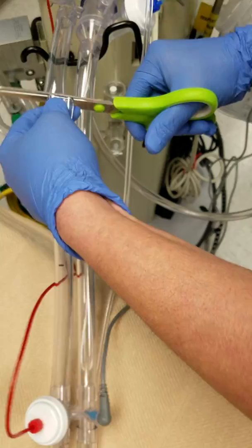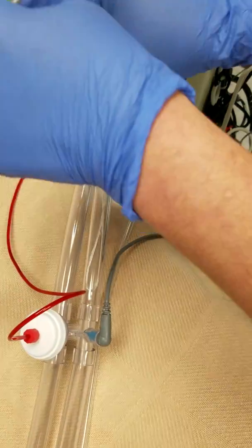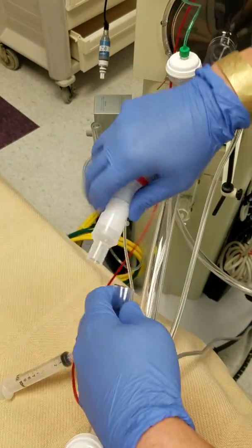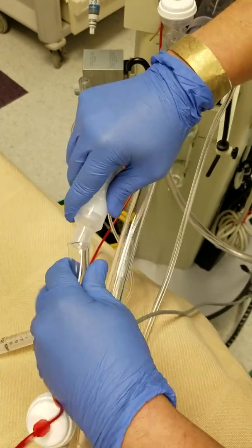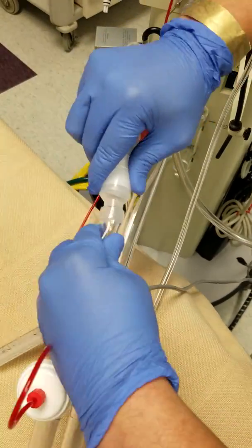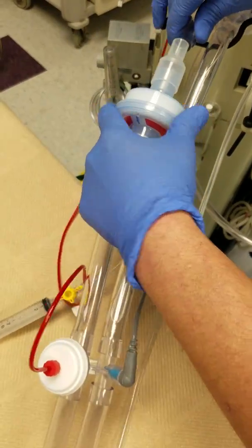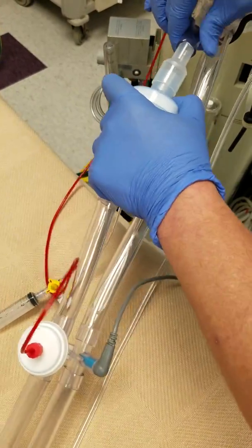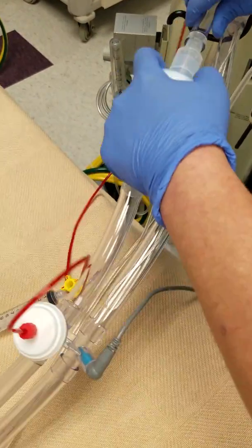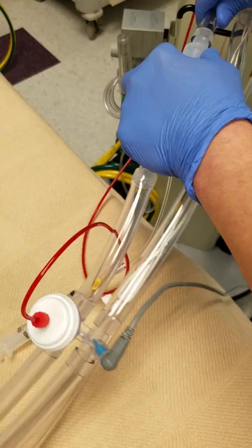Cut here and cut here — make sure you don't cut your finger. The best way to do this is face the end downward and then make your connection. Push it in as much as you can to where you cannot move it anymore — usually at least a quarter inch or as much as you can. Work it in; it's not going to come out. Make sure this end is up and then work the other one in. If you feel unsure of how it looks, you can always put a zip tie around both ends so it doesn't come loose.